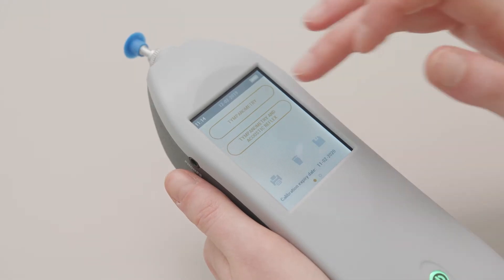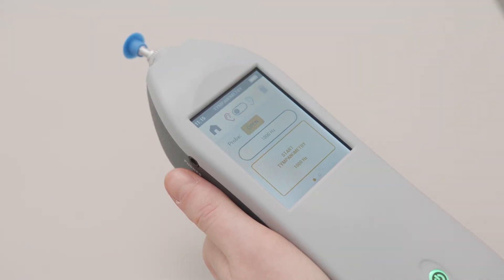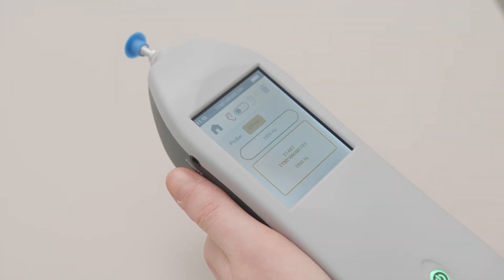To conduct the tympanometry test simply press the corresponding button on the touchscreen. The stimulated side can be changed simply by pressing the ear icon at the top center of the screen. If your tympani has the 1kHz probe tone license enabled, the frequency of the probe tone can be changed from 226 to 1000 Hz simply by pressing the button with the corresponding function.